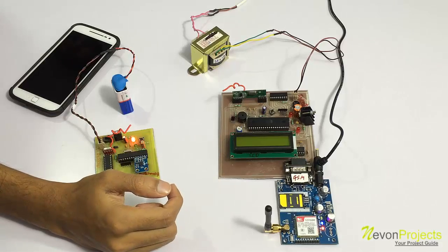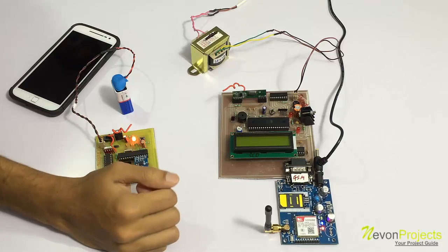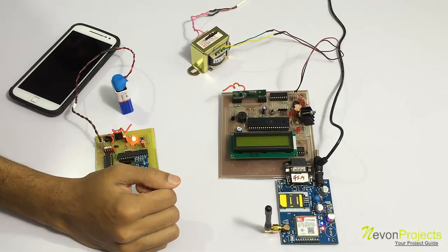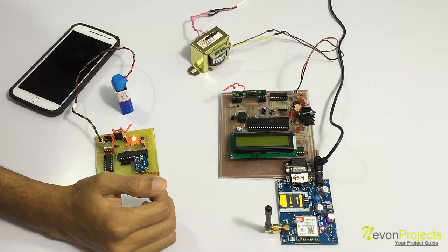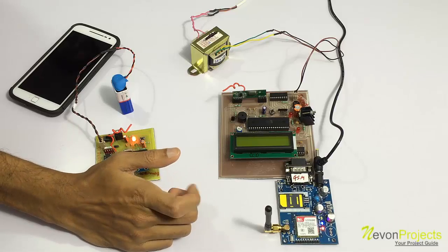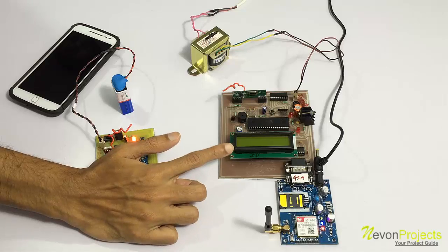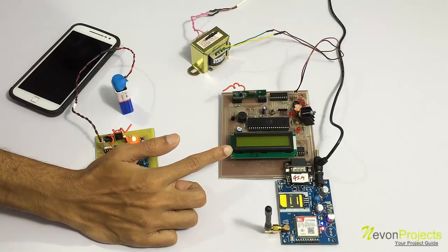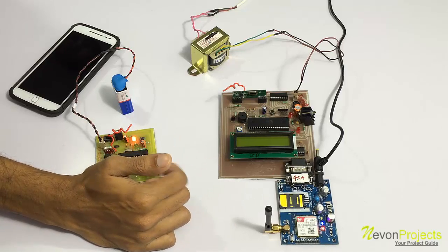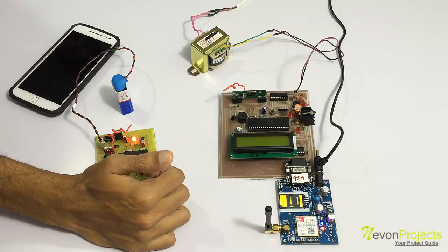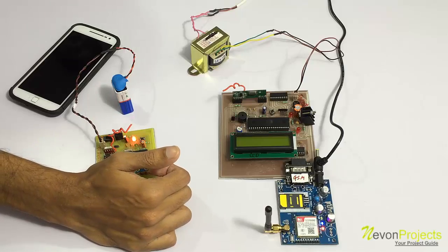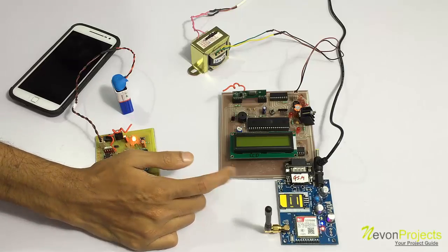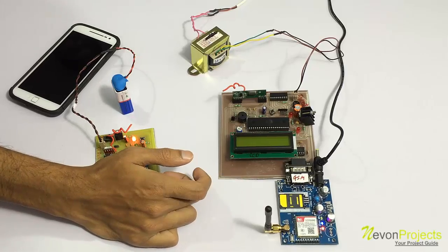Whenever the patient turns this in any particular direction, it sends out a message to this controller unit. Each hand movement in each direction has a particular message which is displayed here wirelessly when information is conveyed from this circuit to this one.